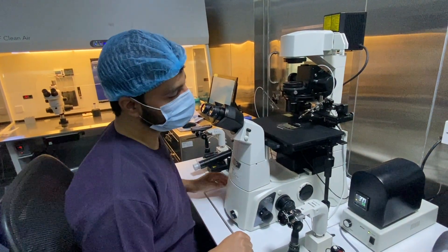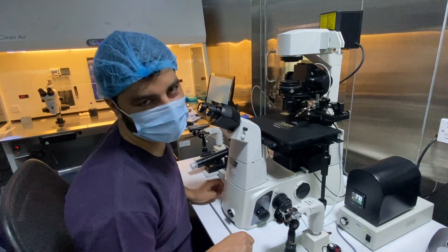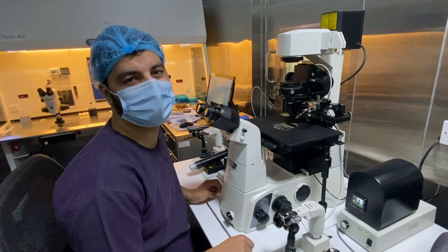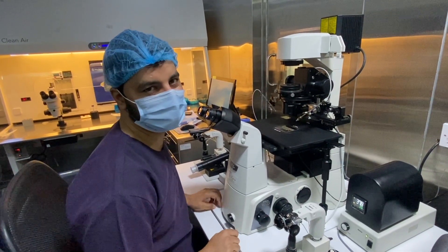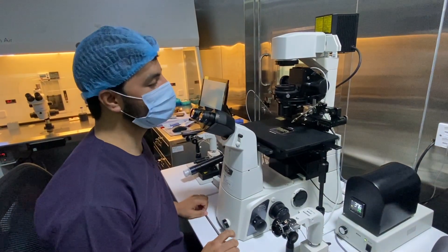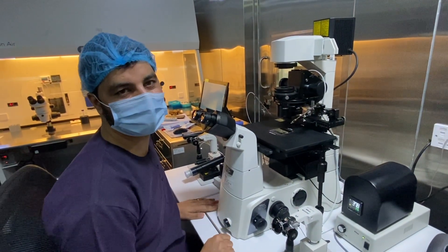Good afternoon everyone. Today I am going to show you how to align the machine before performing our procedure or treatment. I will also show you how to put the injecting and holding needle inside the machine.